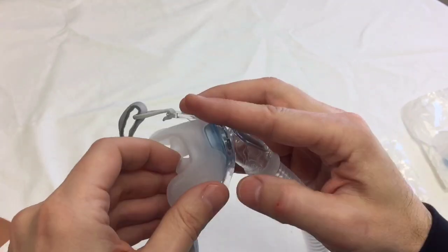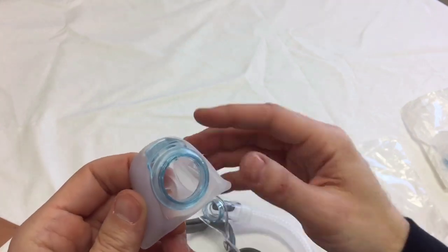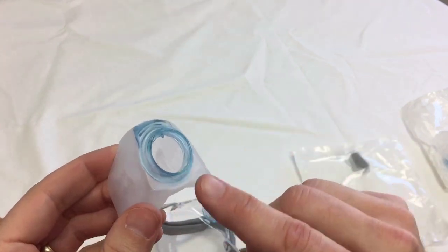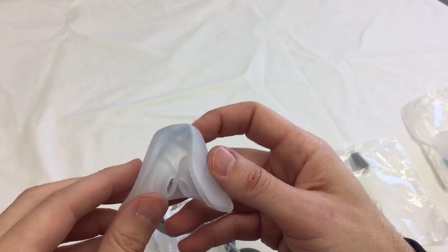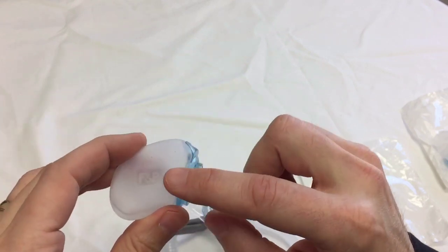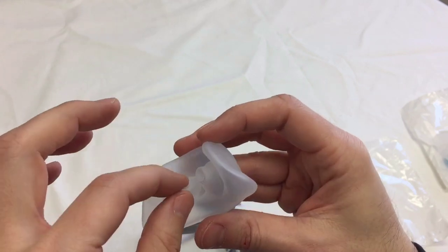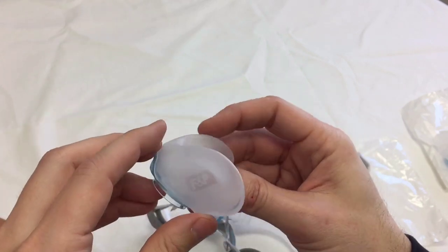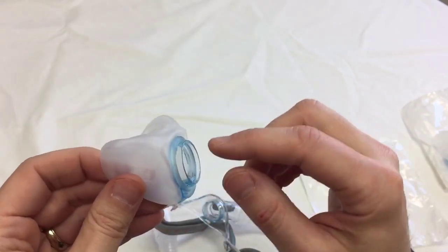Now we'll take a look at the pillow itself. This is the air pillow. It's designed to be worn looser than other nasal pillows, thus less pressure is required on the nostrils. The design of the side supports reduce the likelihood of seal dislodging during sleep. So the sides are a little stiffer, and the parts that go into your nose are very soft and comfortable.